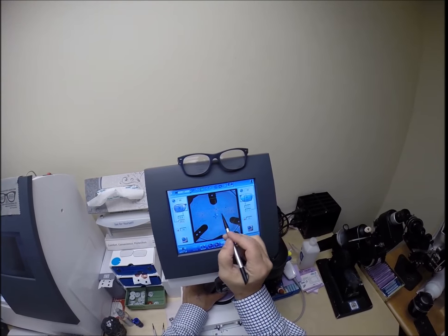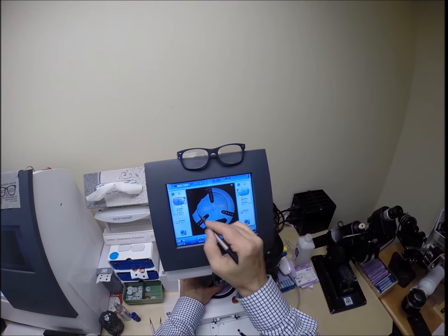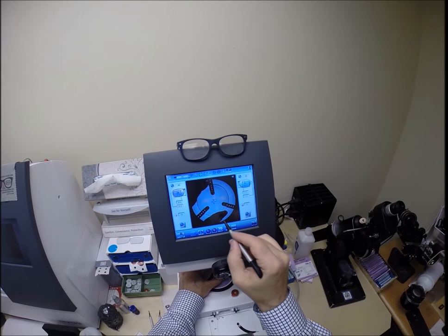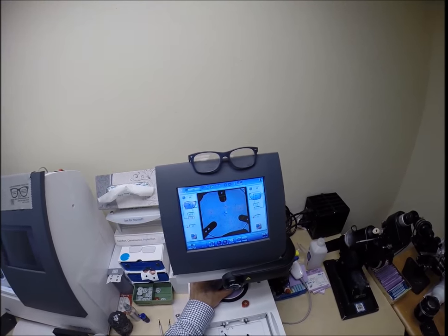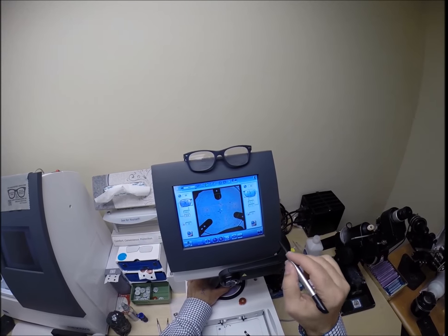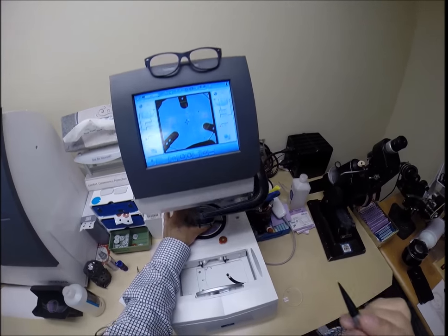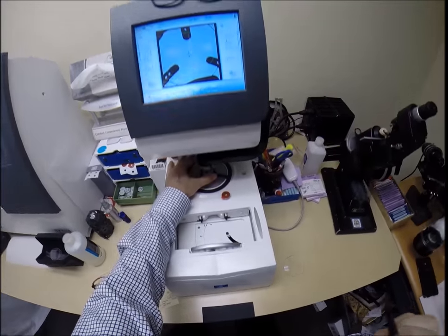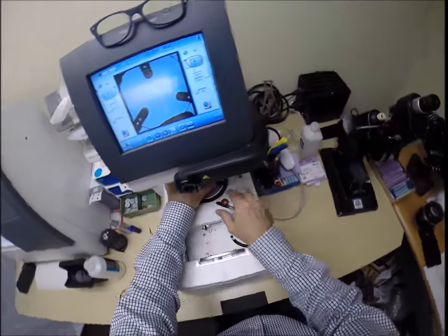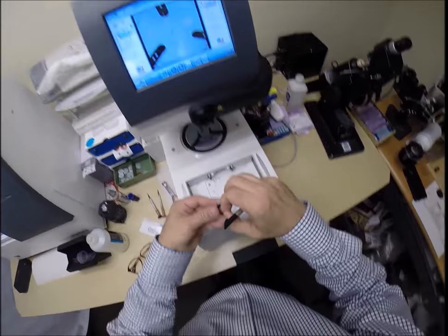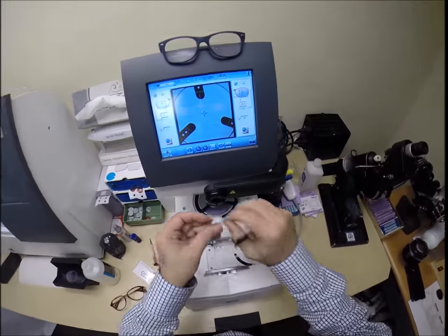I want to make sure the lens is large enough. It is. I'm going to hit that button. The arm is going to come down and place the block onto the right lens. I'm going to do the same thing now for the unright lens. Unright just like me. It ain't right.